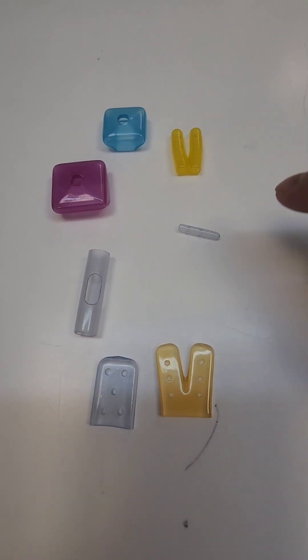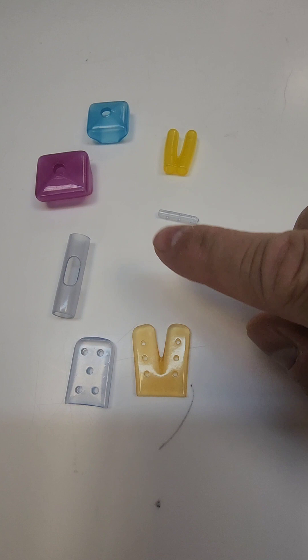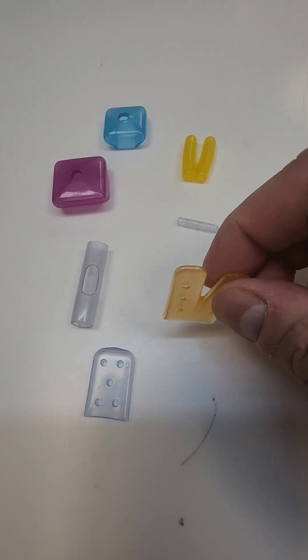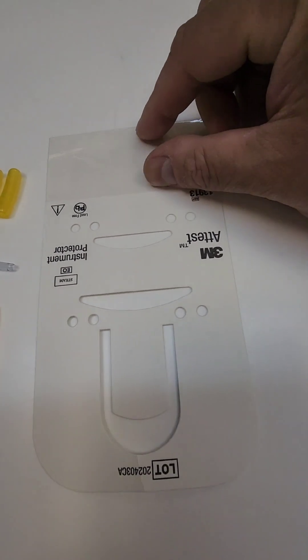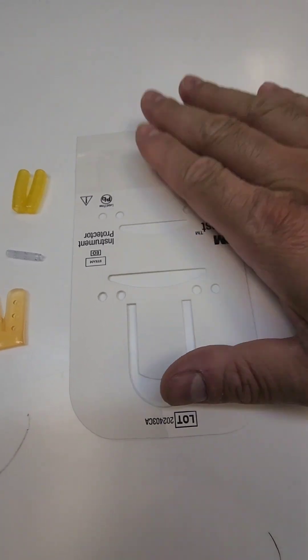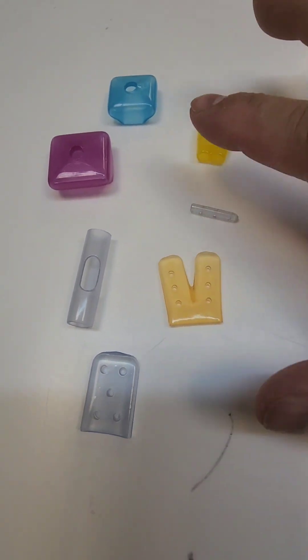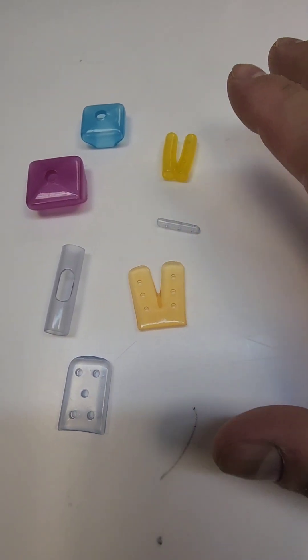You have clear ones and colored ones, but it has been noted that they're trying to get rid of the clear ones and going more to the colored ones, because the clear ones tend to get lost in the tray or hide in there — especially the small ones. You can forget to take them off an instrument and they might fall on a patient. So they're going with the colored ones. Now you also have the cardboard-style ones; this brand here has a little plastic in the front. The cardboard-style tip protectors are only validated for peel packs.